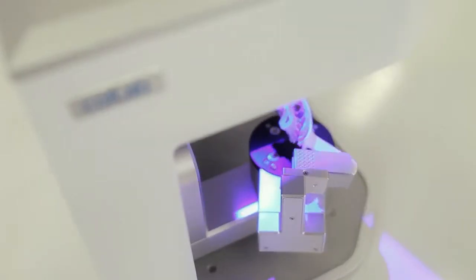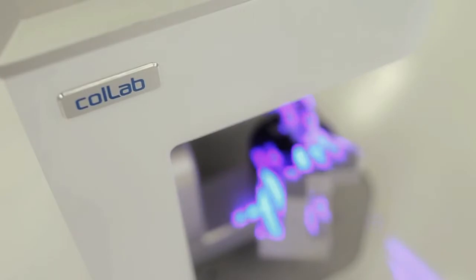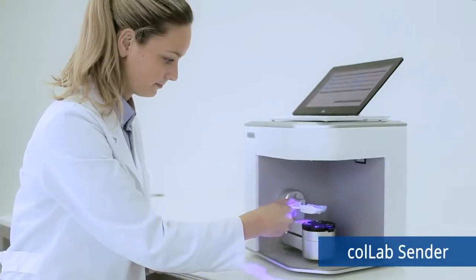Using the advanced 3D optical technology devised by Medit, the CoLab Sender can produce the high precision data in a short time. It's easy to scan by the CoLab Sender.